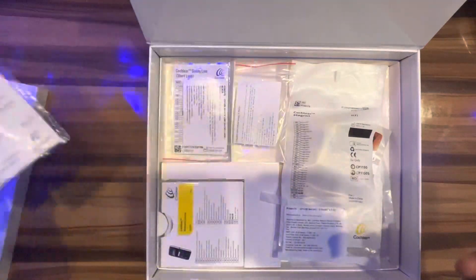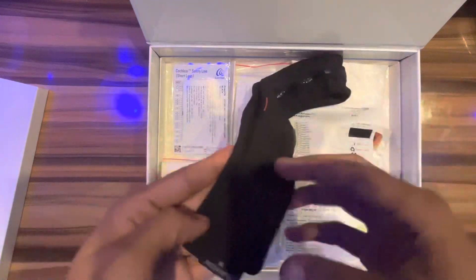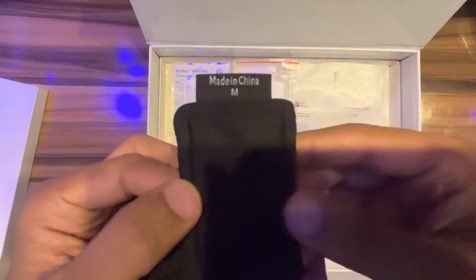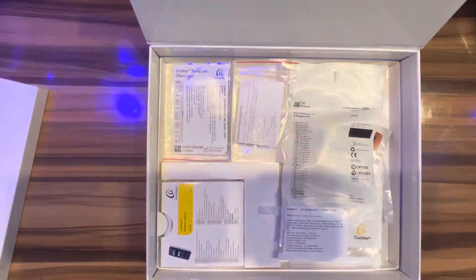This is a cochlear headband. It's more flexible. Made in China, M size, cochlear band.